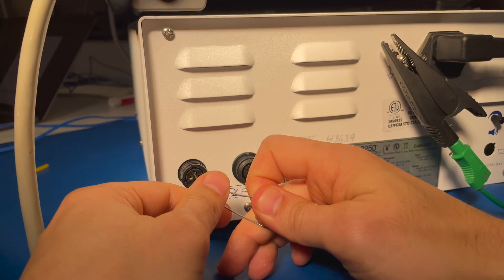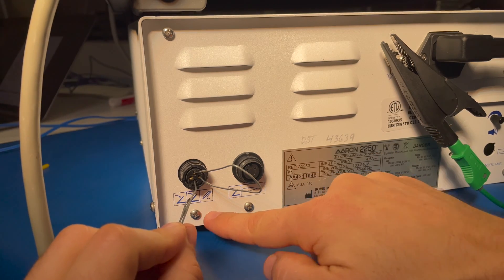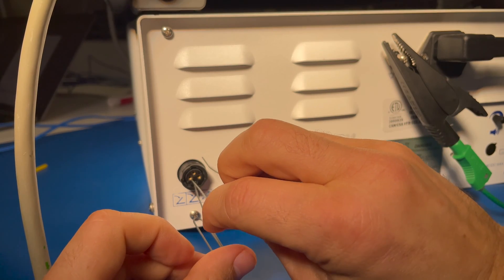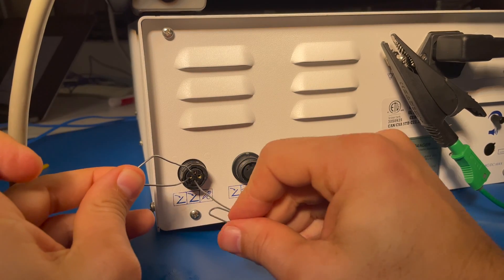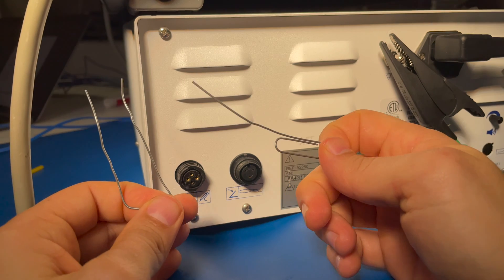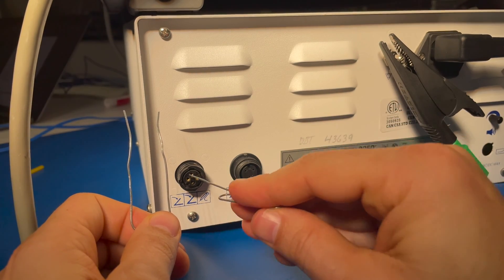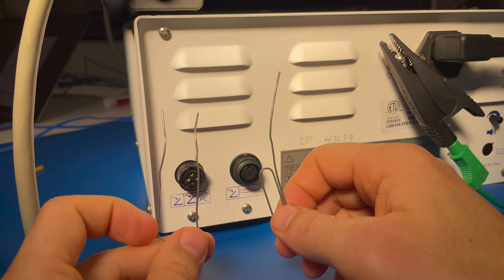To activate cut and coag on the monopolar mode, as soon as I touch these two paper clips together, I cut. Then if I want to switch to coag, I go to the other two ports. So when I connect this paper clip to the one up here, we get our coag. Obviously having paper clips or something to jumper this can be handy in the short term. If you're doing this all the time, I'd recommend creating a little jig with a push button to make this a little bit easier. Sometimes finding those foot pedals can be a real challenge, so this is an option in a pinch.